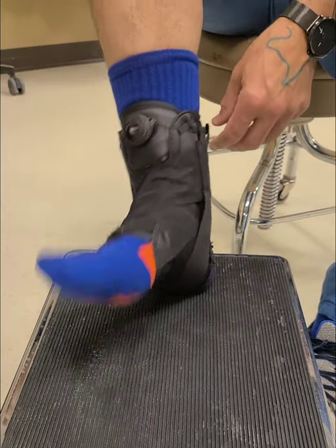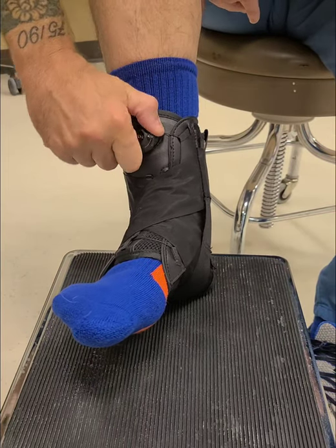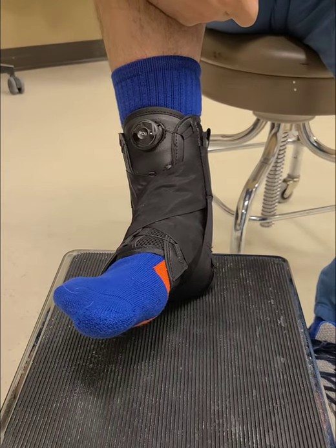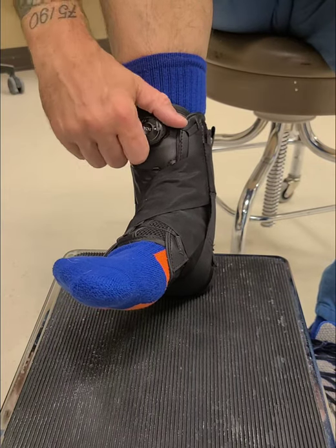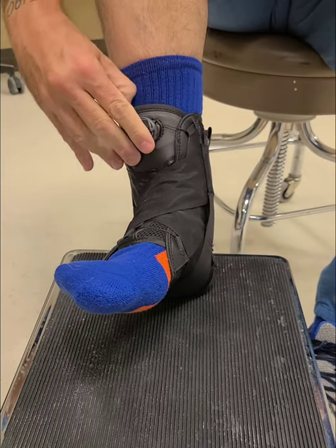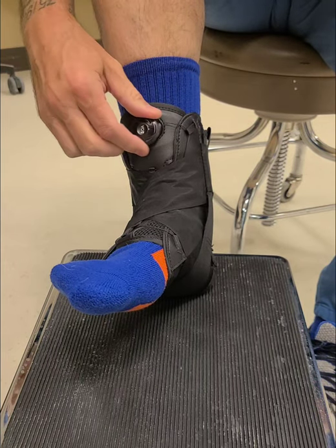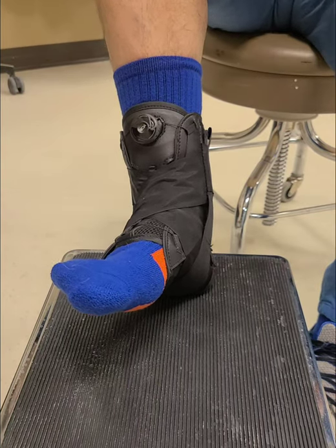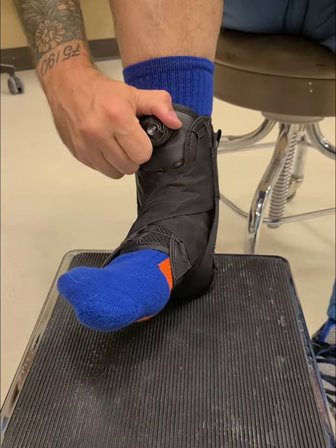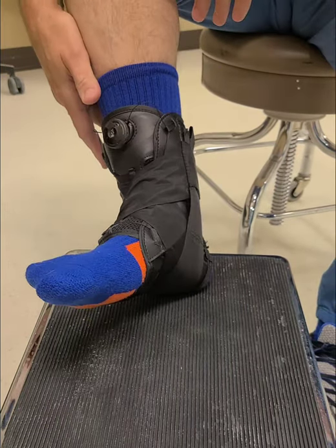Also, when you're walking around throughout the day this might start getting a little bit looser — what's nice is you can just reach down and click it a few more times. Or maybe you've made it too tight and it's digging in, so you can pop it out, loosen it up a little — but remember you've got to click it back in or else it's not secure, and then just don't tighten it as much. To take it off you just reverse the steps, and at the end you pop that dial out and it'll come right off your foot. And that's your DeRoyal BOA ankle brace.